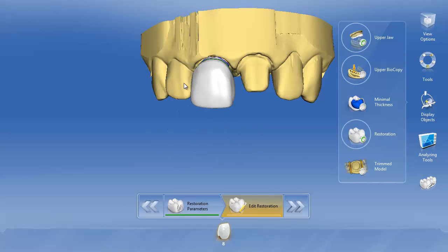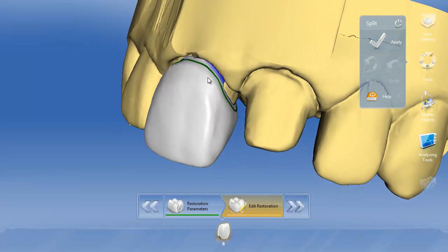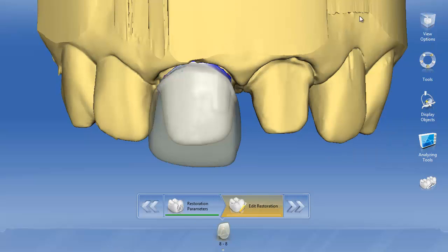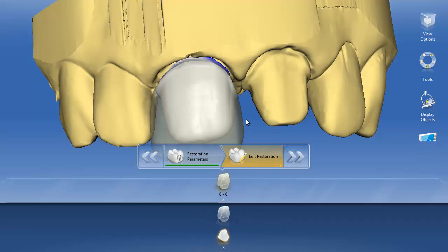As soon as we click split, a green line is going to come up. In these scenarios where we're really deep, we want to keep this green line somewhere at the level of the tissue. In this example it's a little bit skewed, but it serves as a good illustration. I generally just keep the green line where it's at for my initial split. We'll go ahead and hit apply to get the split. Now we've created both a framework — like we did in the previous video — and an overlay. You'll notice down in the dock bar it says 8-8, which signifies we've got a split with both a veneering structure and a framework.